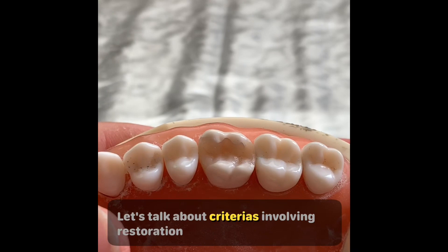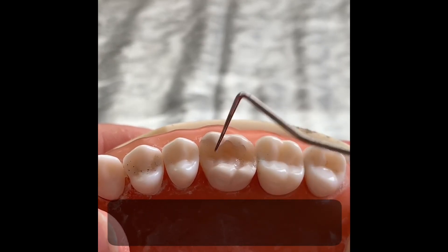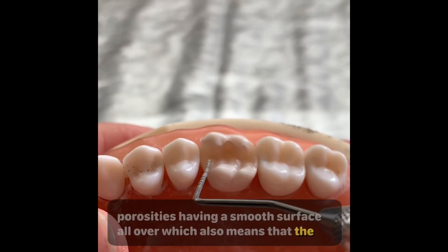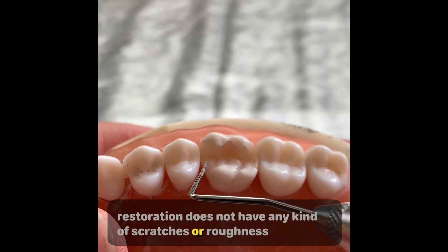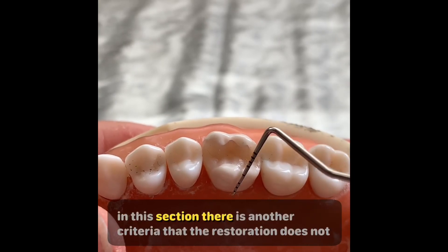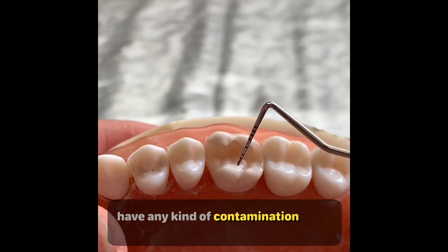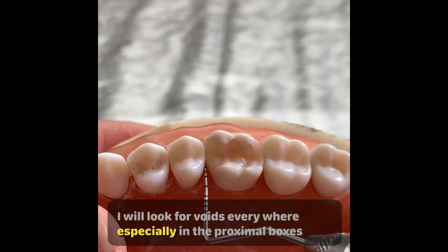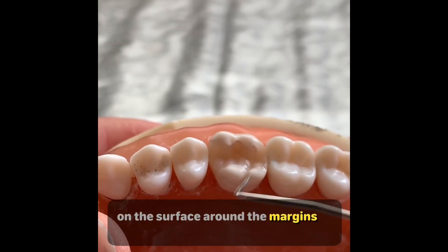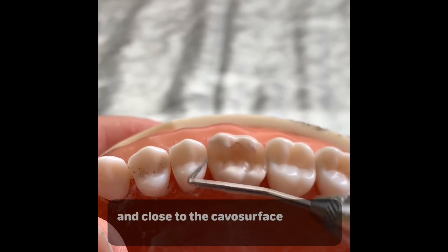Let's talk about criteria involving restoration only. This will include voids, porosities, having a smooth surface all over, which also means that the restoration does not have any kind of scratches or roughness. There is also the criterion that the restoration does not have any kind of contamination. I will look for voids everywhere, especially in the proximal boxes, on the surface, around the margins, and close to the cavo surface.